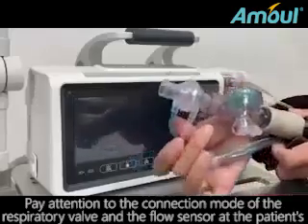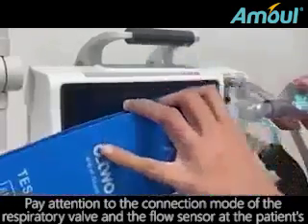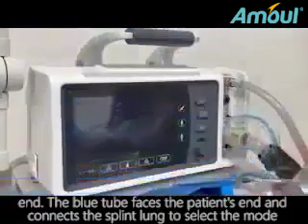Pay attention to the connection mode of the respiratory valve and the flow sensor at the patient's end. The blue tube faces the patient's end, and connects the test lung to select the mode.